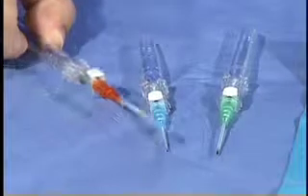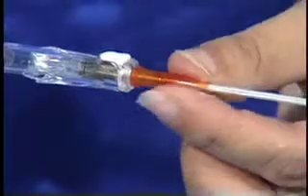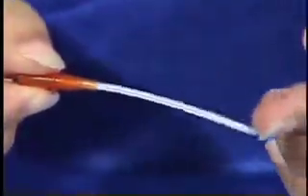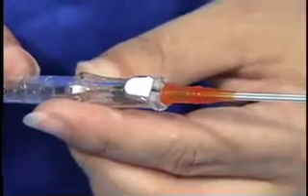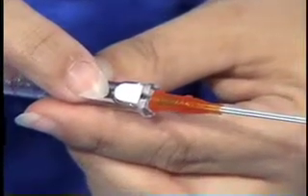The tip of the catheter is angled and should always be inserted with the bevel facing up. The IV catheter has an inner metal introducer which is retracted and discarded after placement. The flexible, smooth outer plastic catheter is what is left in the vessel for infusions. Safety features such as a button to retract the sharp introducer are also part of the IV catheter that may vary by manufacturer.